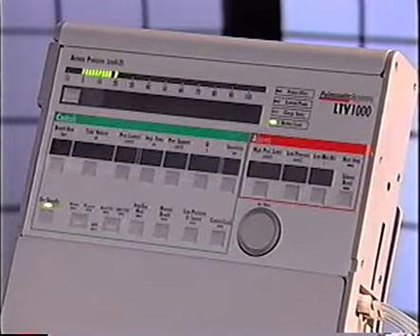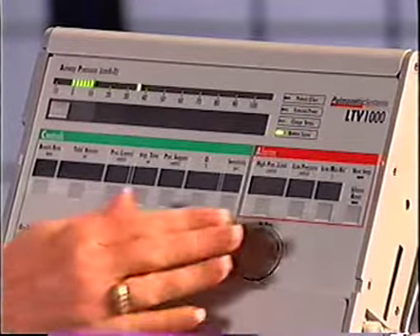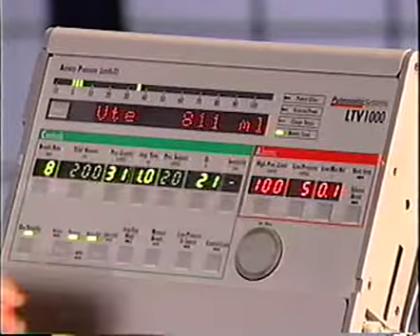The displays may all go blank when operating on the internal battery in order to conserve power, sort of like when a laptop computer monitor goes blank when you are using the internal battery. You can turn the display back on by pressing any button or by turning the set value knob. The LTV control displays may flash or remain constantly visible.